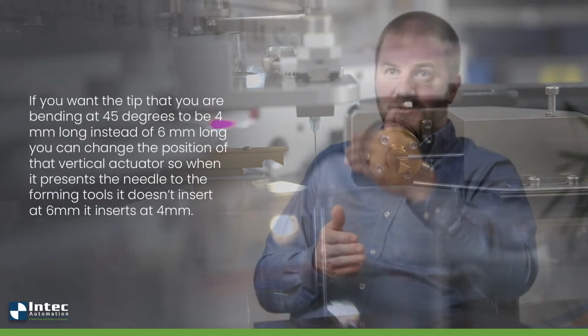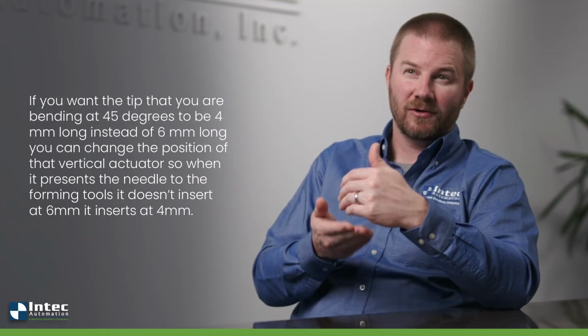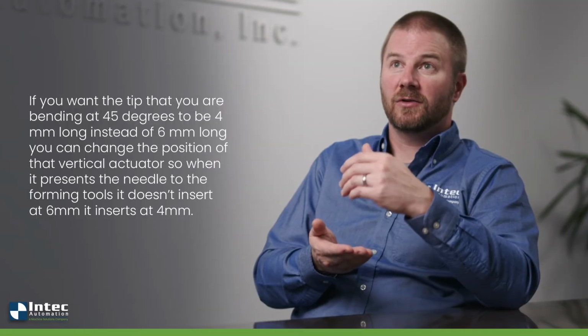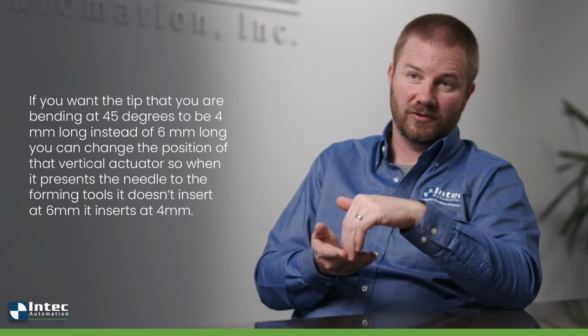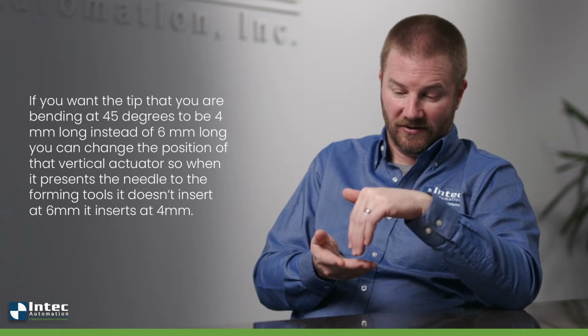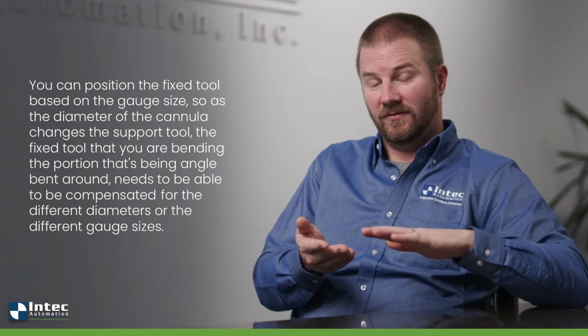So if you want the tip that you're bending at 45 degrees to be 4 millimeters long instead of 6 millimeters long, you can change the position of that vertical actuator so that when it presents the needle to the forming tools, it doesn't insert at 6 millimeters, it inserts at 4 millimeters. And you can position the fixed tool based on the gauge size.